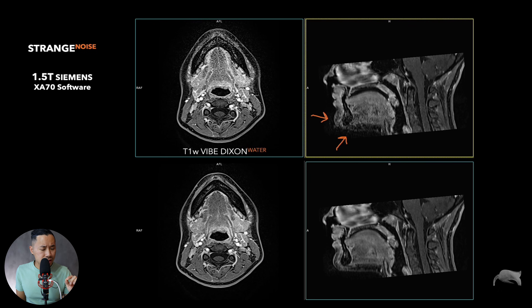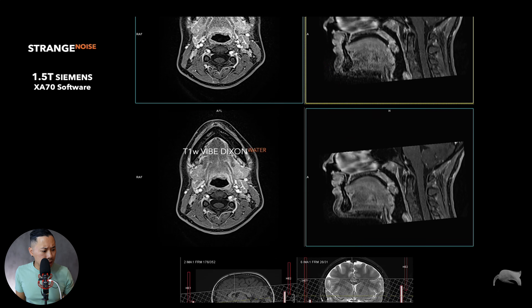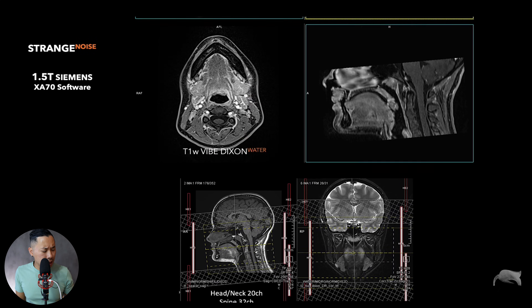There was a one-click solution which gave images like this. You can see now the noise is gone. The images are still good in the back, the upper part is good, and now the image looks much, much better.